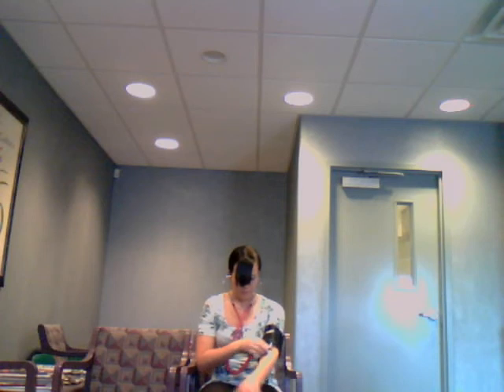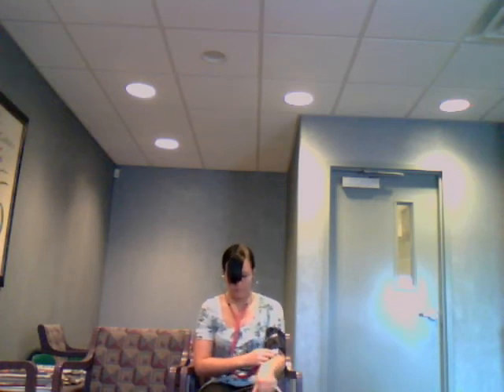Now, to check your blood pressure, you put the stethoscope in your ears and put the bell of the stethoscope on your arm. If your normal blood pressure is around 120 over 80, then you would want to pump it up 30 more, so you'd pump it up to 150. You put it on here and pump it up, then let the air out slowly. Mine was 108 over 78.